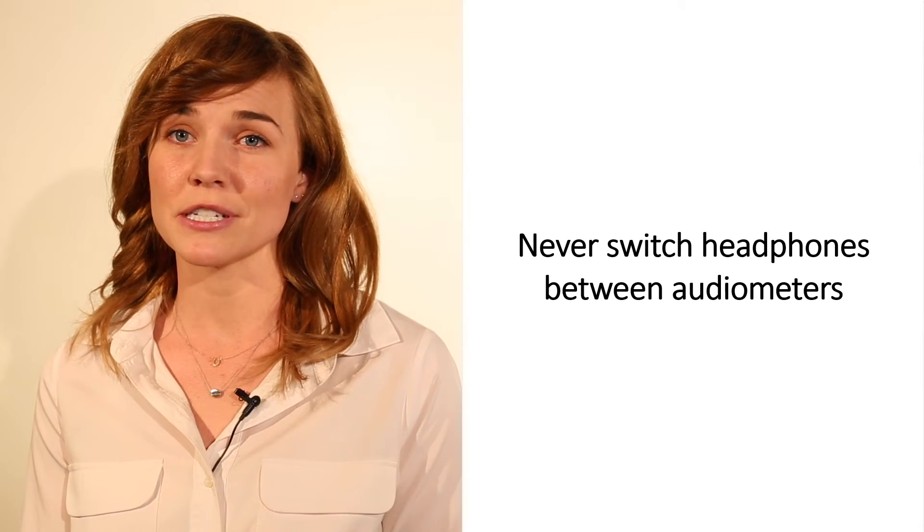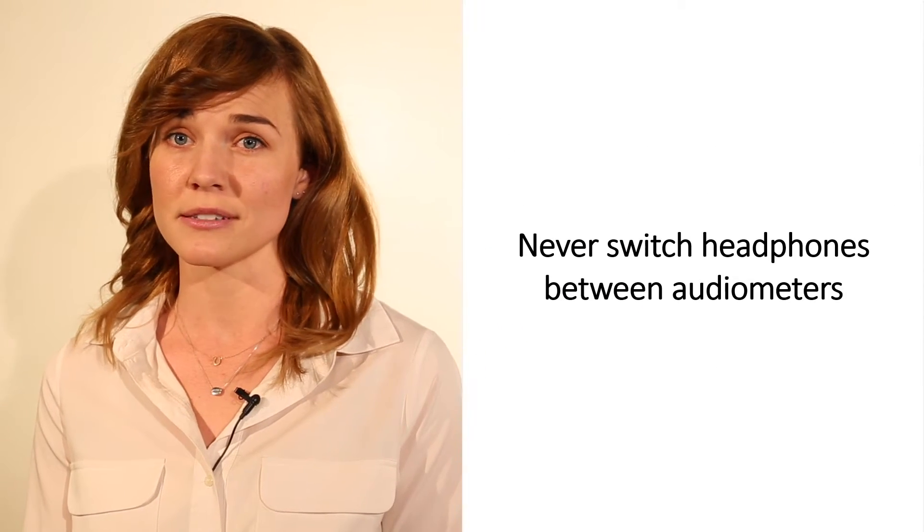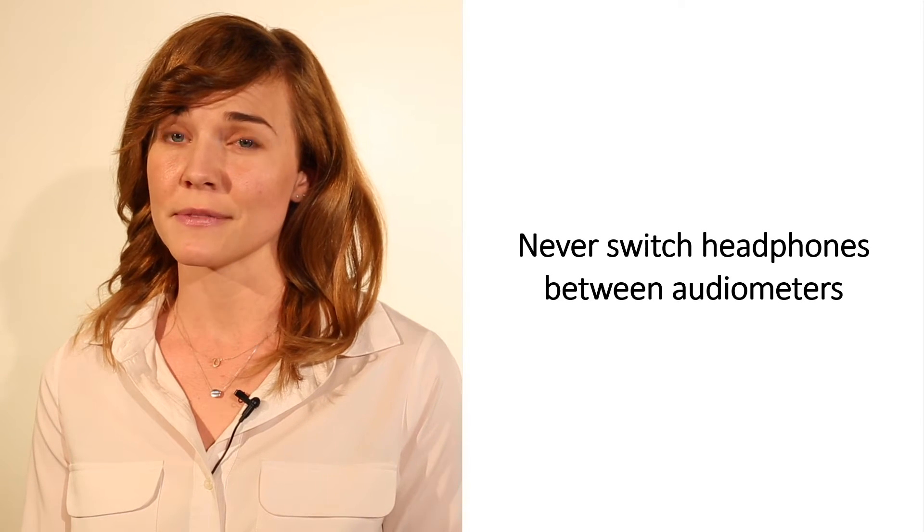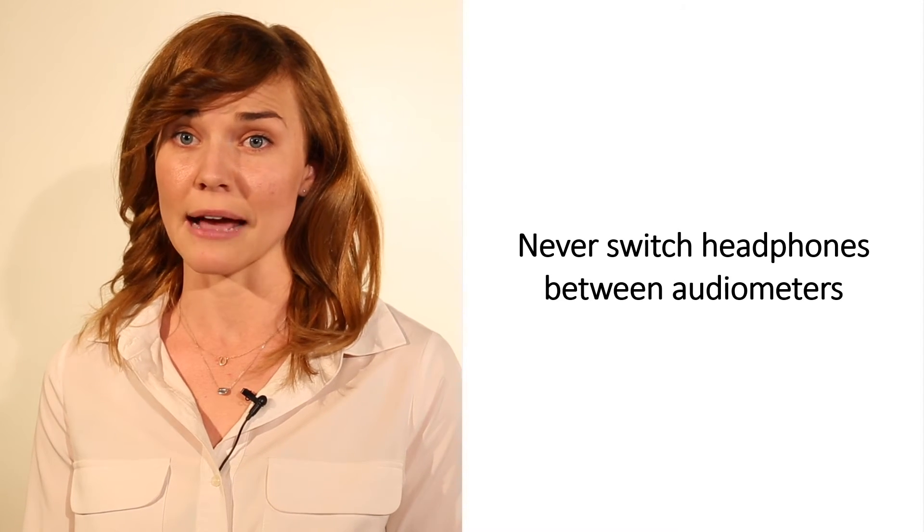As yet another reminder, never switch headphones between audiometers. They are calibrated together, so switching them is likely to result in false screening outcomes.